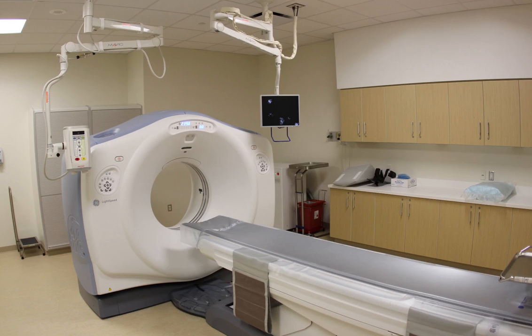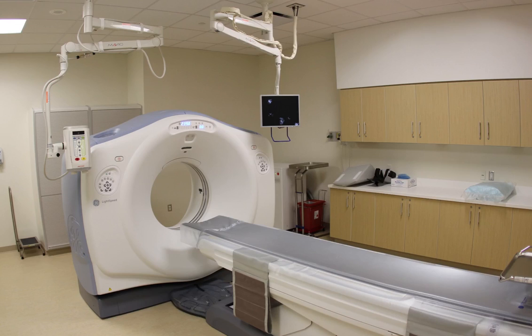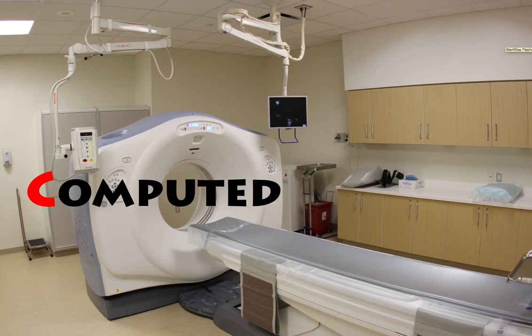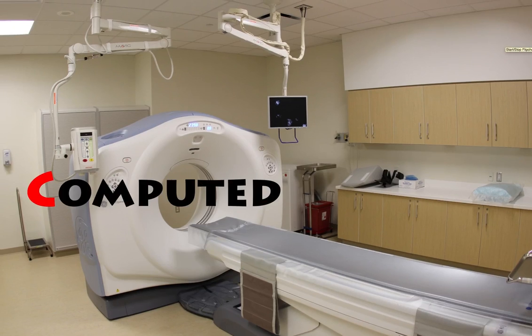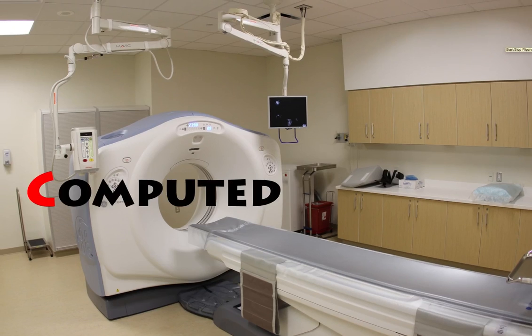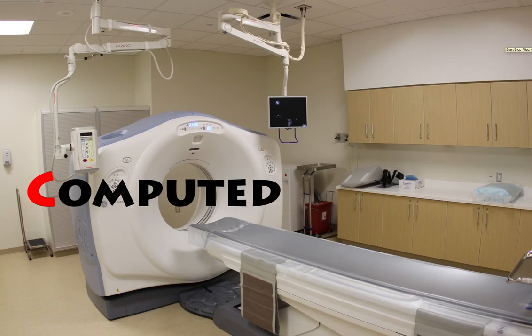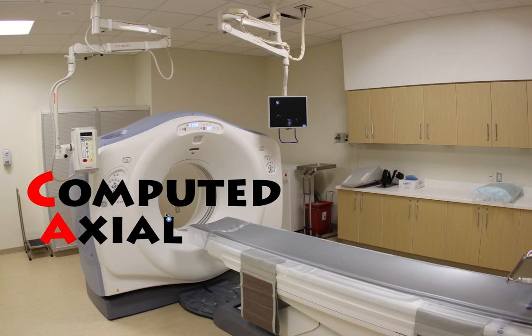What does CAT scan actually mean and what does it stand for? The C stands for computed. The machine takes a series of data points around your body and that information is compiled in a computer to form an image.